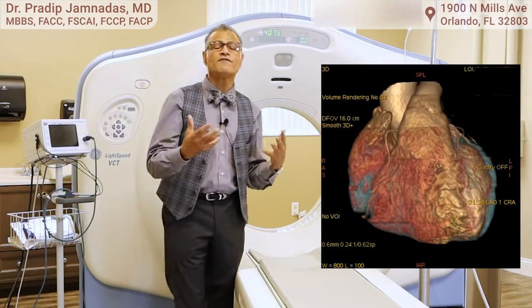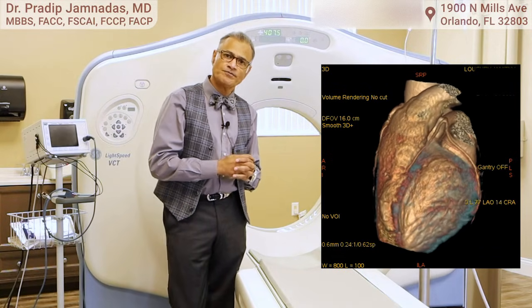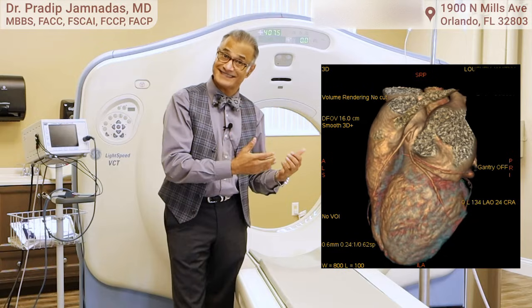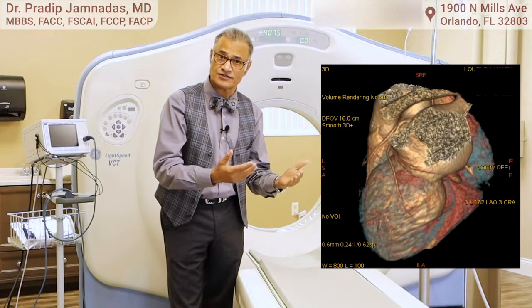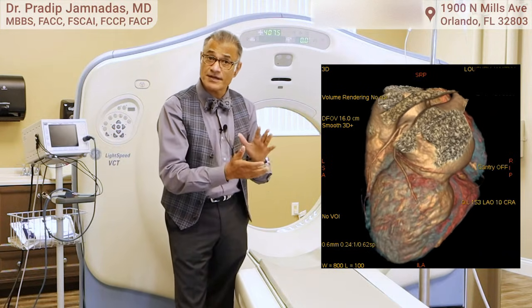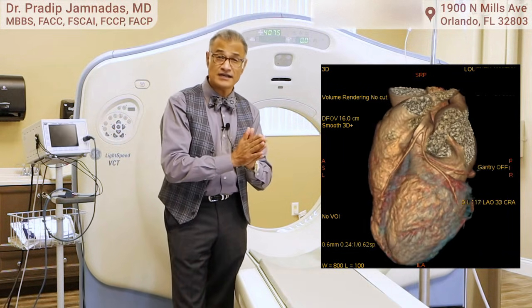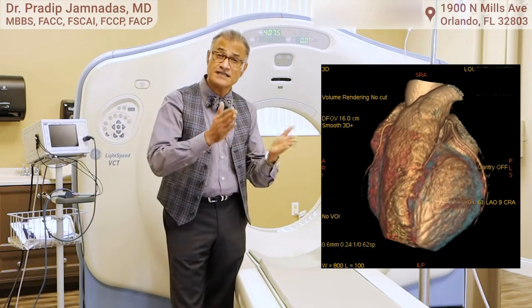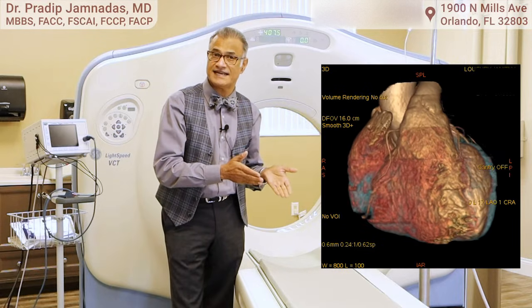So what information do we get out of a CT scan of the heart? In the past, we performed stress tests, and we still perform a lot of stress tests. But in those patients where we suspect there may be coronary artery disease, and who could fall either way — negative or positive — that's an intermediate risk patient — we'll do a CT scan instead.